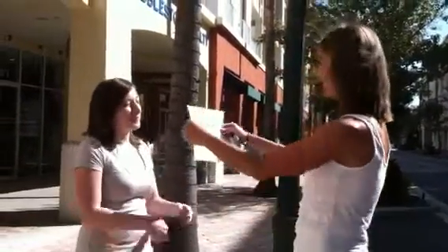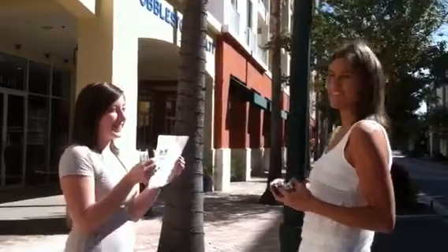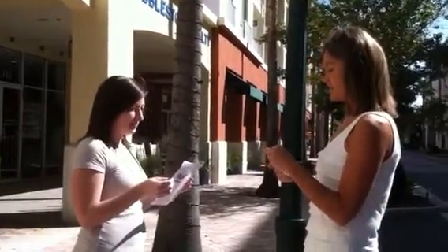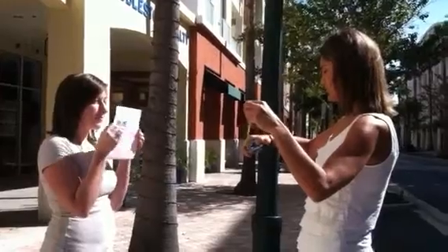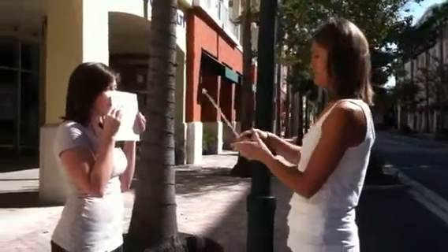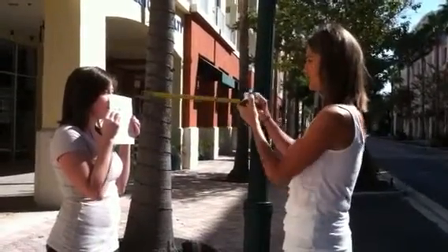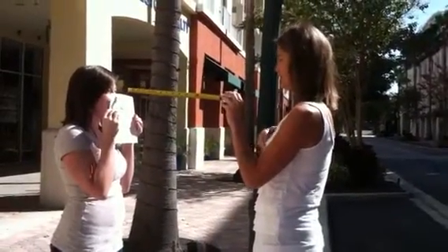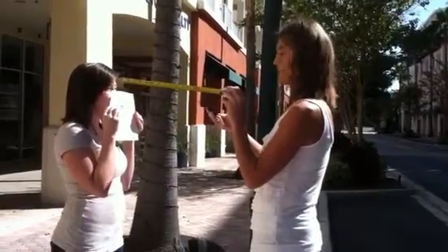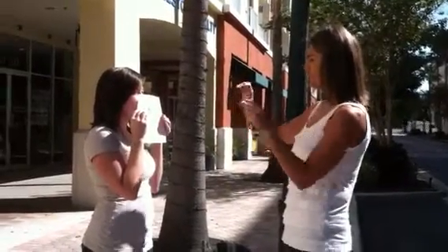Here is the PD paper, and on there it says you should stand 16 inches away. You don't have to be exact, but we'll do 16 inches since that's what it says on there. So 16 inches right here. I'm going to take a camera phone and take a picture.